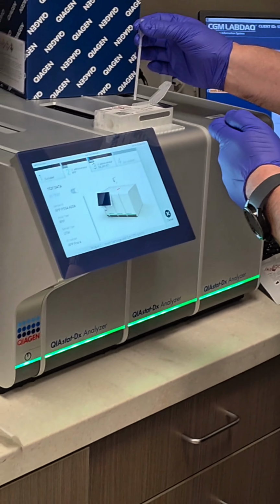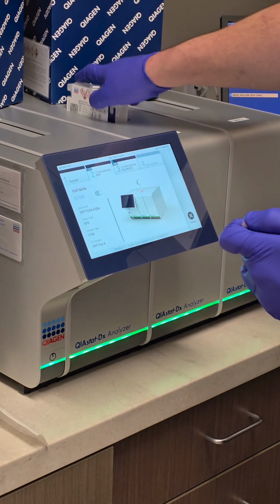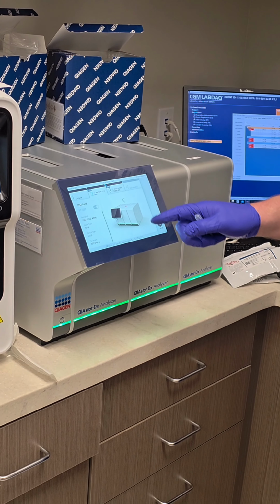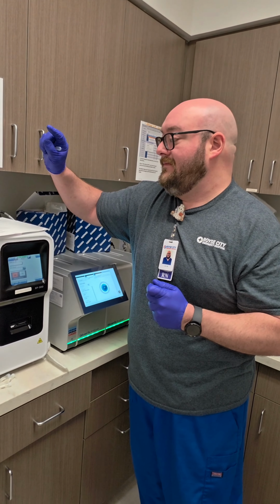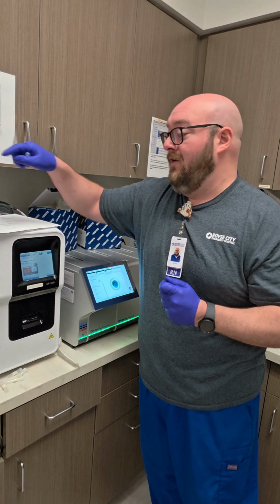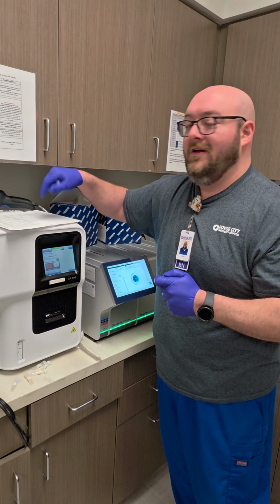Fill that up all the way in, close it, and then just set it gently there. And that's respiratory A. We're going to do the same process with respiratory B, same process with negative, and then the same process with GI B and GI negative. We're going to repeat this tomorrow, and then day 8, and after that it'll be day 15, 22, 29, 36.